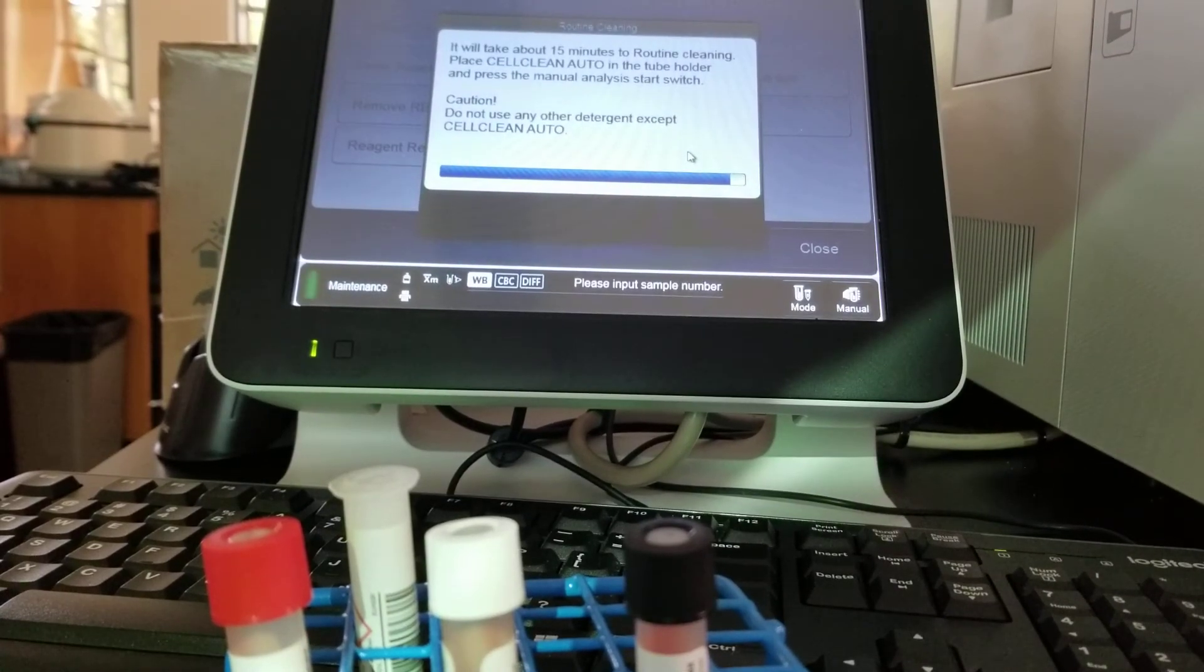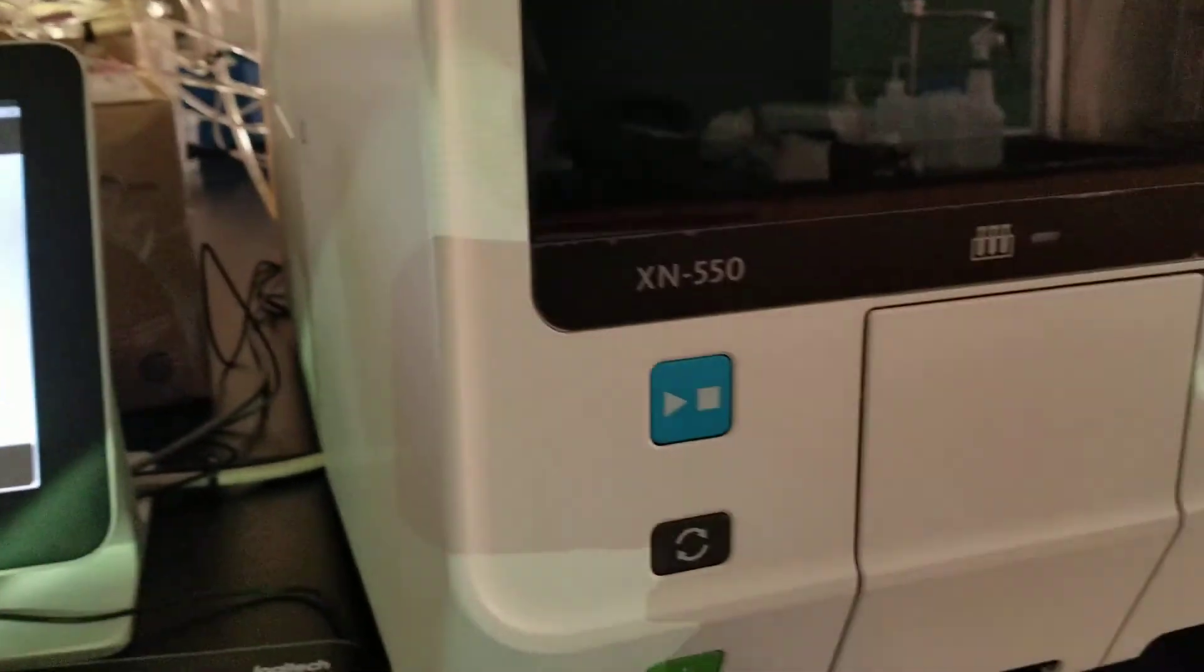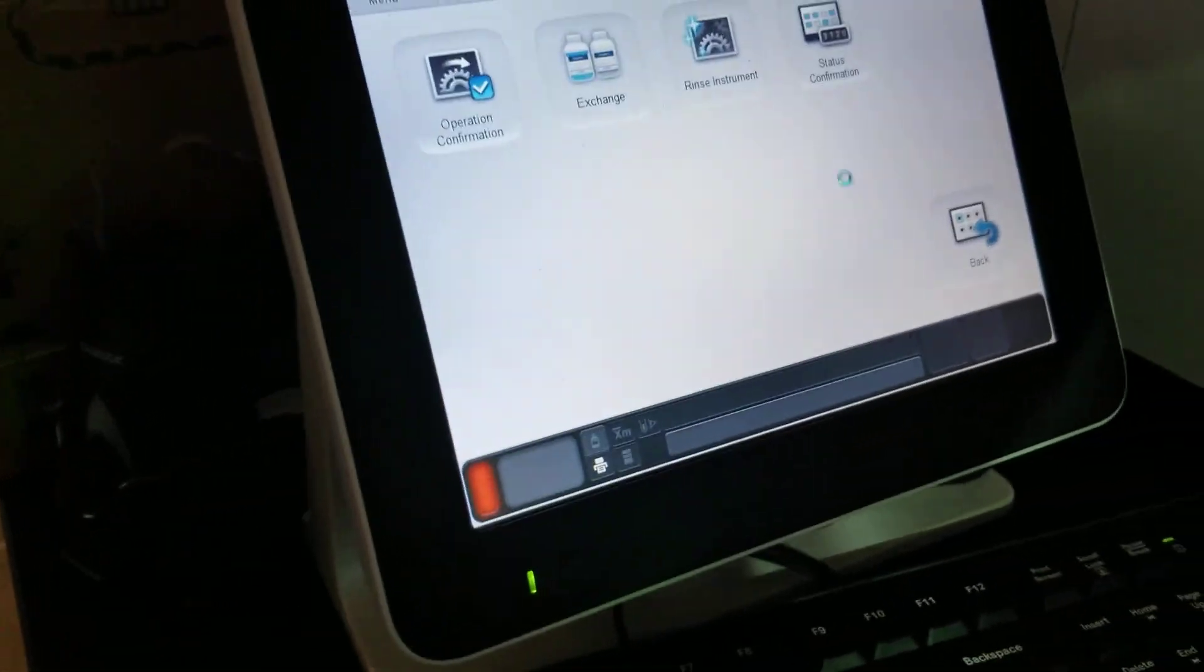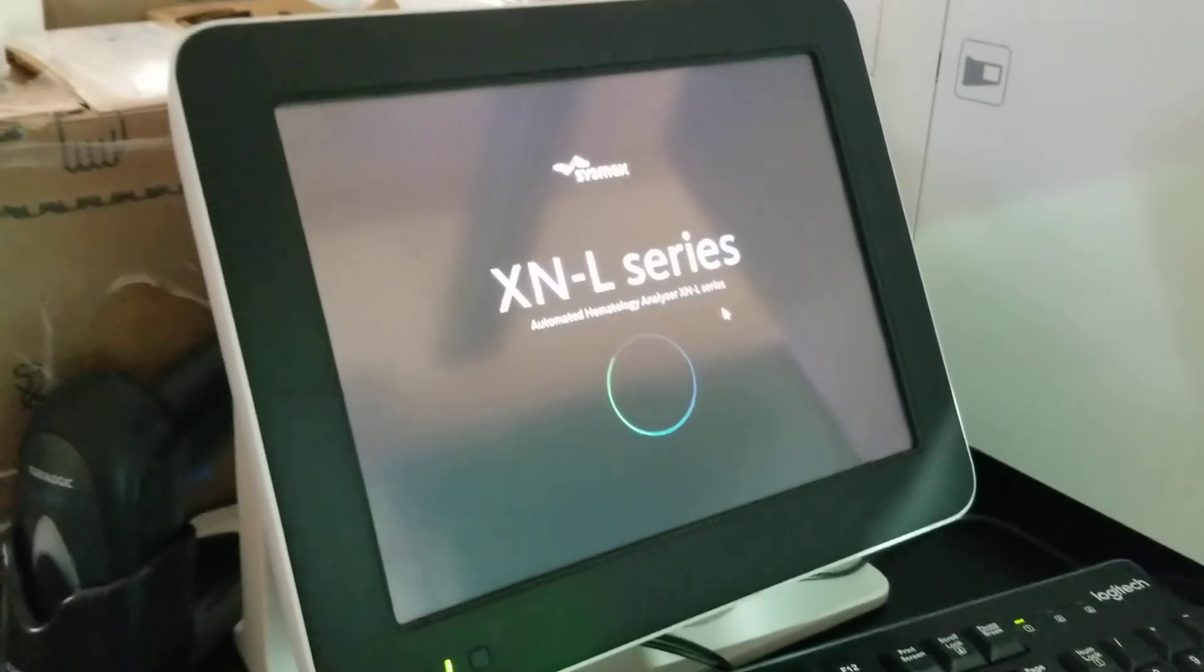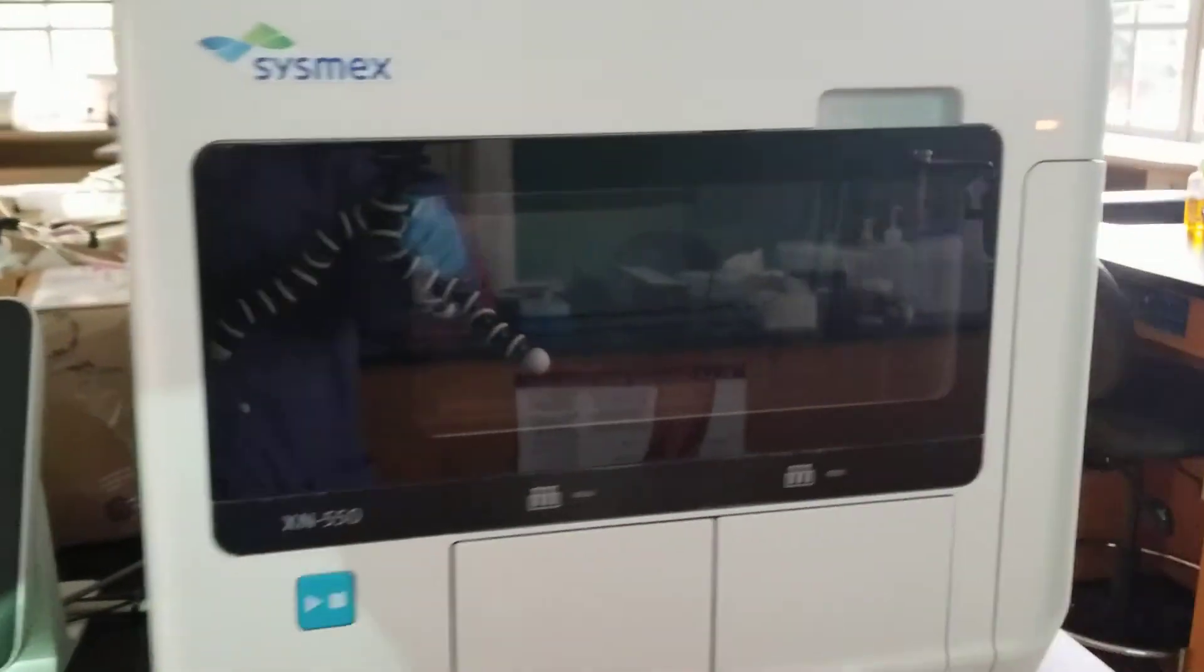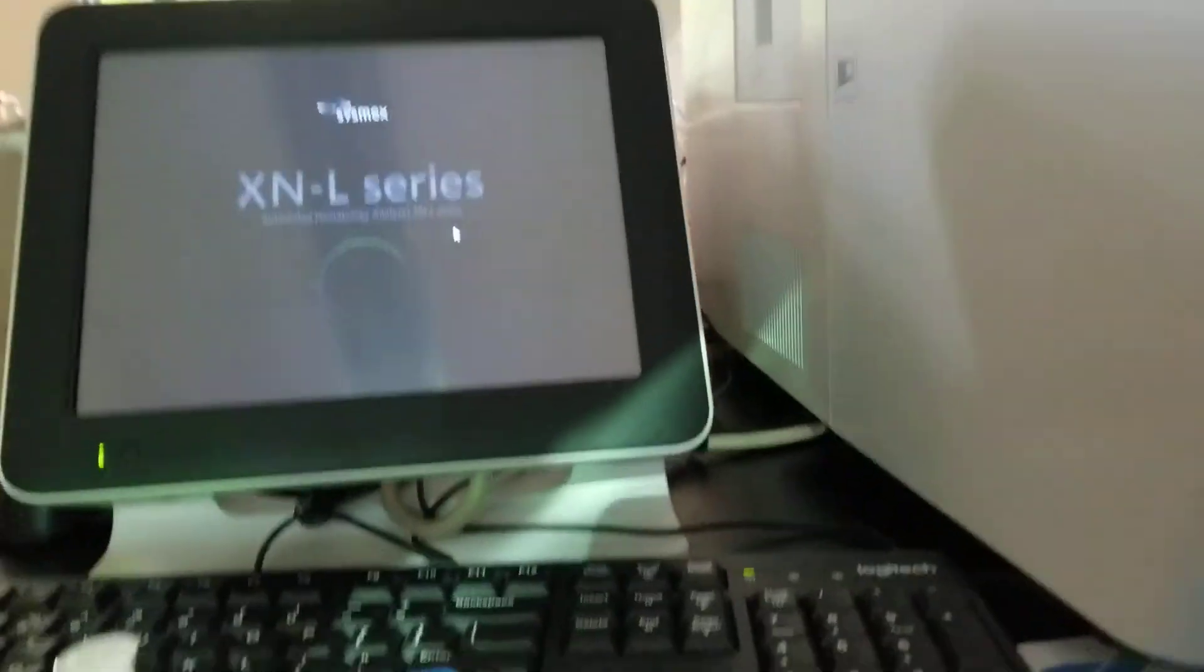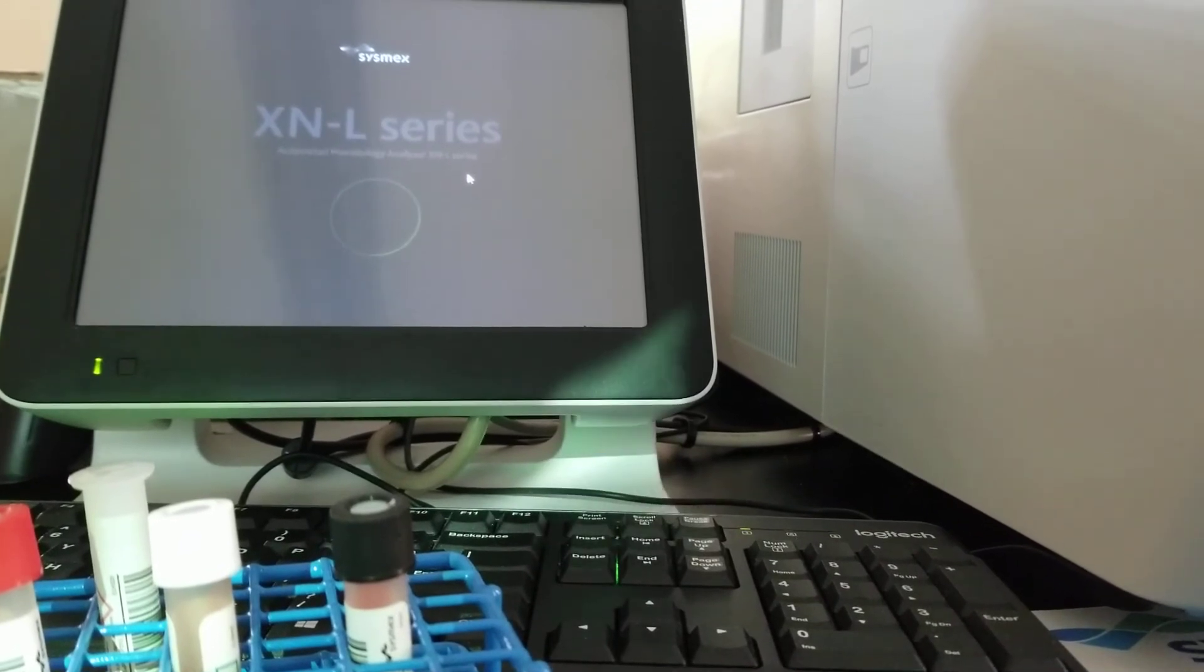We're towards the end here now, and there's a lot of commotion happening in the actual analyzer itself. It's showing you that there is a not ready light because it's shutting down. So it just shuts back down. It looks a lot like what it did when we first turned it on. Red light there says it's not ready and that's what it looks like. And really there's nothing else to show you as it's shutting down.